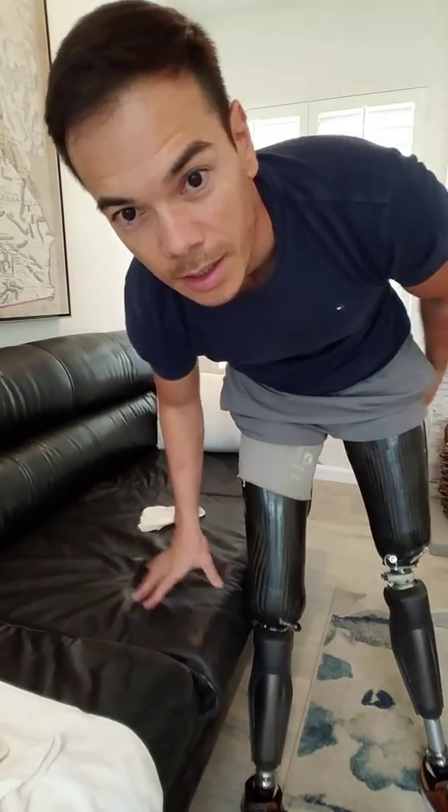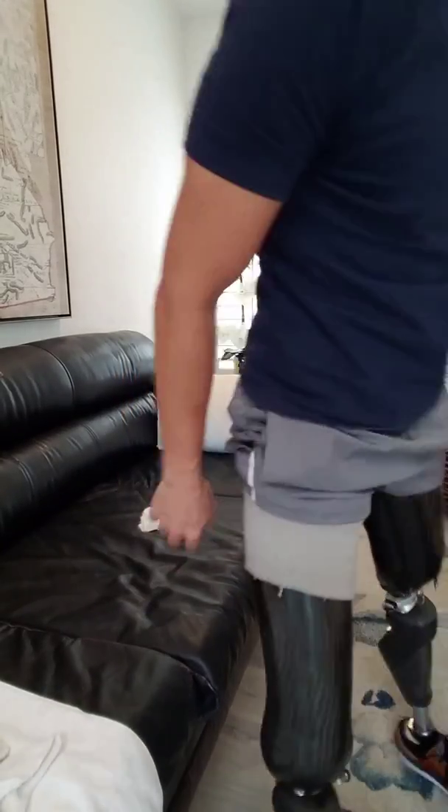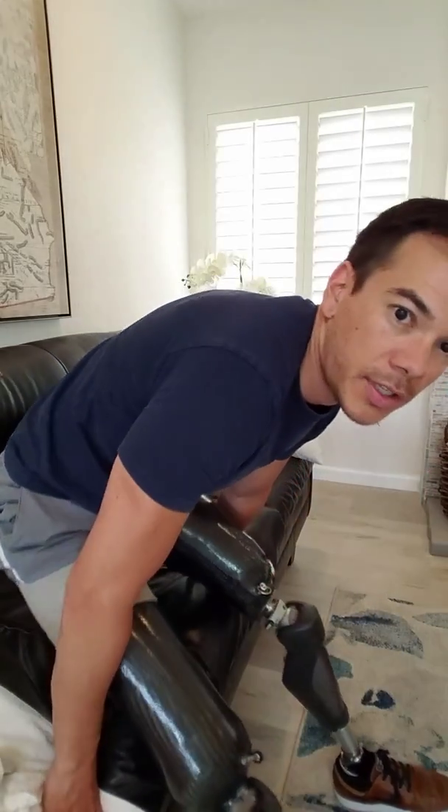That took — let's see — it was 11:35 when I finally put it on. So less than two minutes. And I've done it quicker; I was just explaining it for everyone to see.